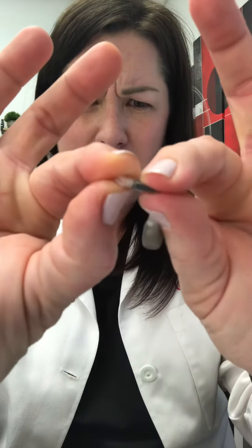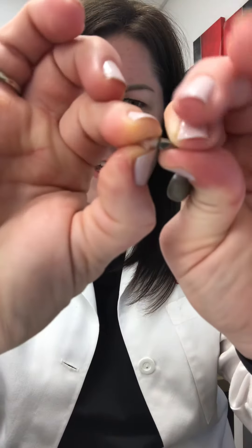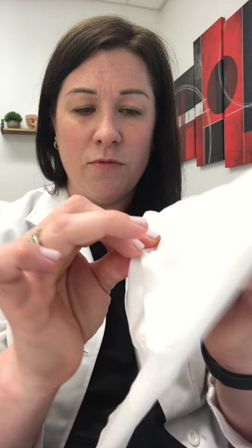So essentially, what I like to do is kind of fold the earpiece forward, use my thumbnail or a nail to kind of get between the silver and the white part, and then just kind of pull straight across. Another way that's also helpful is to grab a tissue, put it over top just to give you some resistance, grab ahold of the wire, and pull straight out.